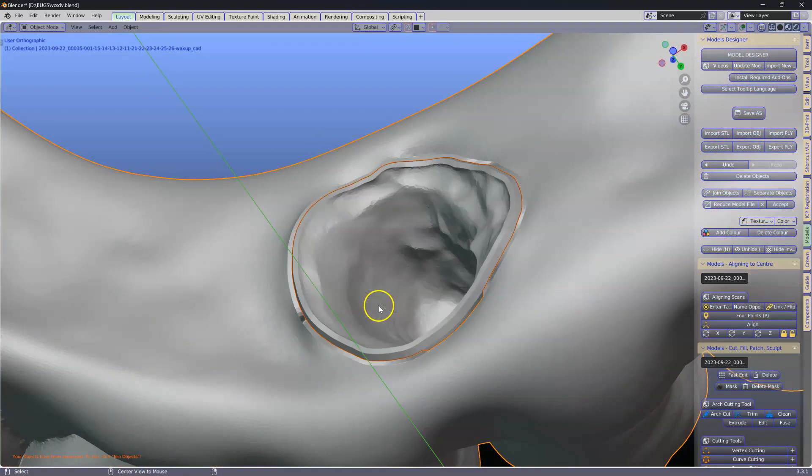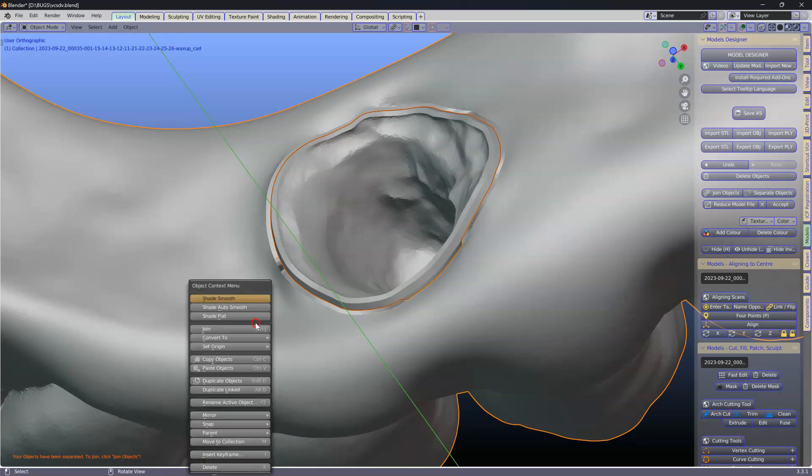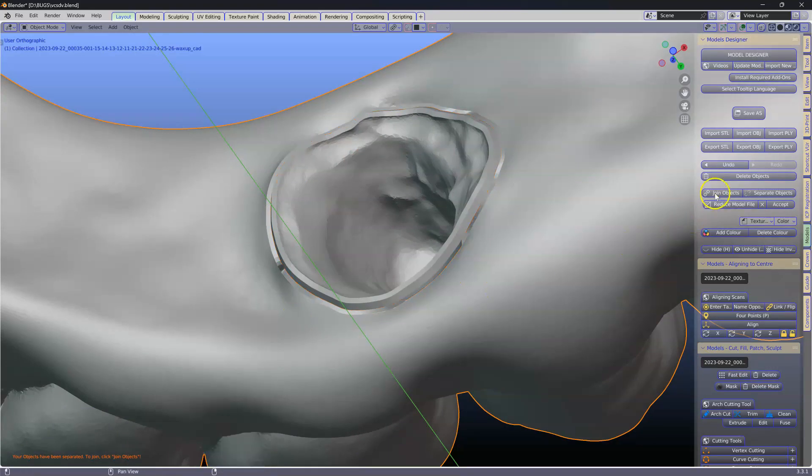Tab to get out of it. Alt-H. Now we're going to merge these two. This one and that one. Ctrl-J or Join, or find yourself a Join button. There's here Join Objects.